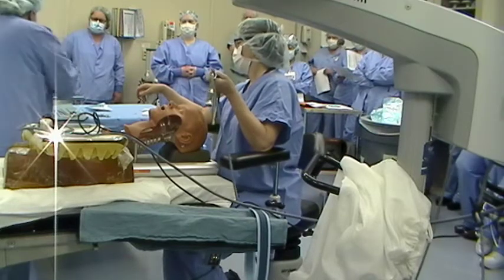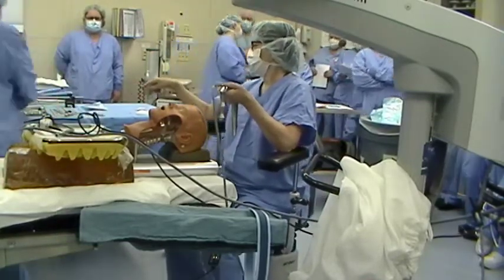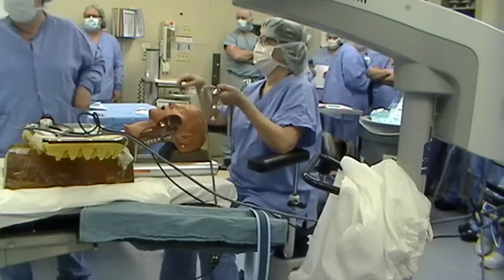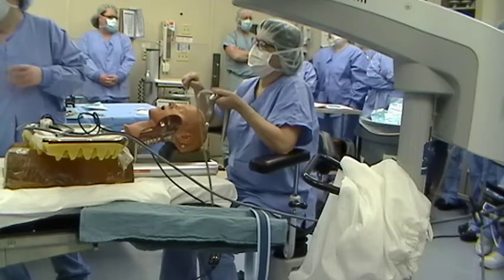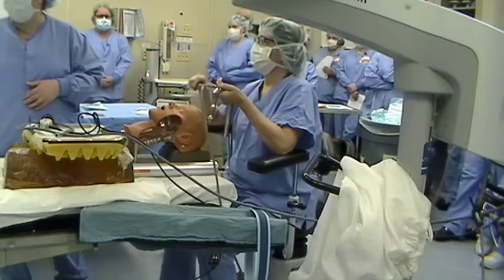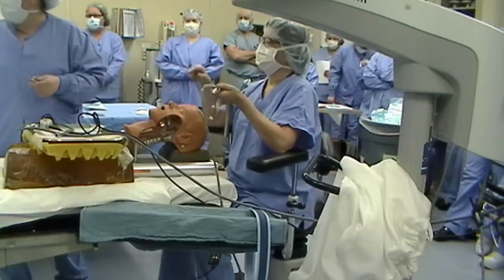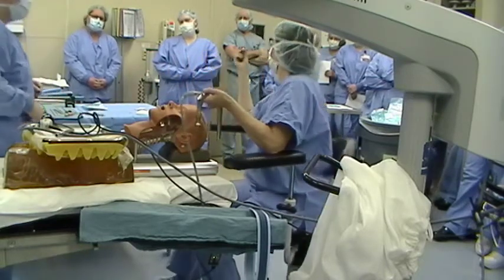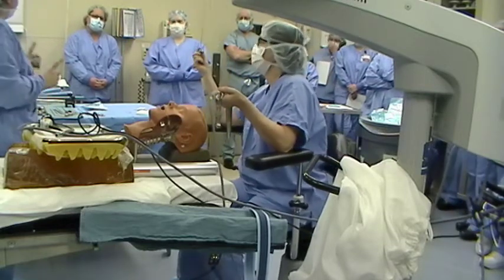Let's show the different sections. The main scope that she's going to use all the time is called the 30-degree Hopkins laryngoscope. There's a 30 and a 70 on the cart that are packaged separately, and there's one set that'll say '30 and 70 degree laryngoscopes' with one of each in the box. Usually she only needs the 30, so that's what I always start with. Nasal endoscopes are not a substitute — they're too short. Sinoscopes are too short; sinoscopes won't work.